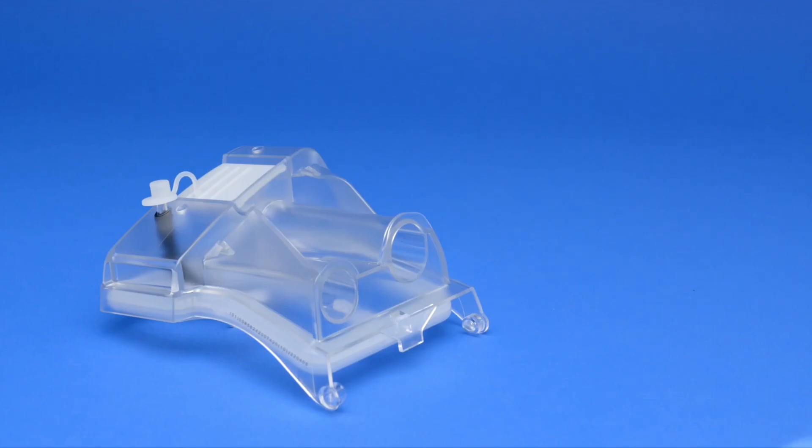If you had been using a SoClean lid adapter, you will need to remove the old lid adapter from your CPAP and replace it with your original humidifier lid.